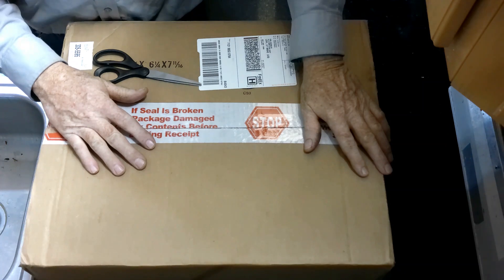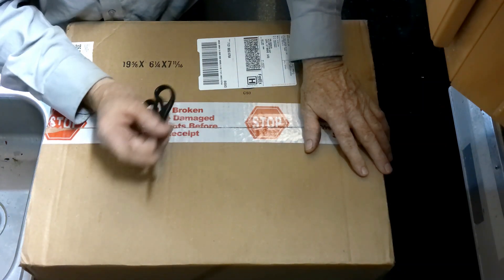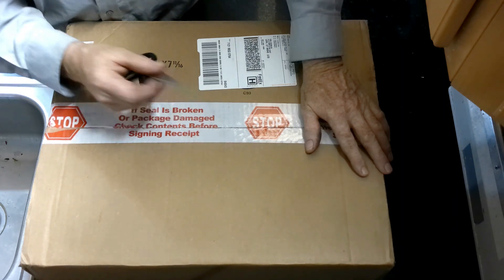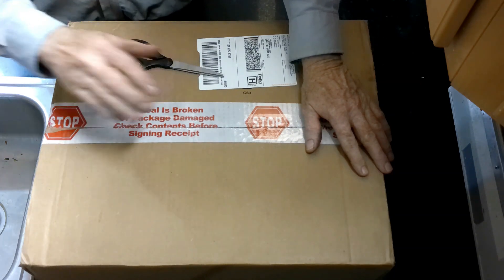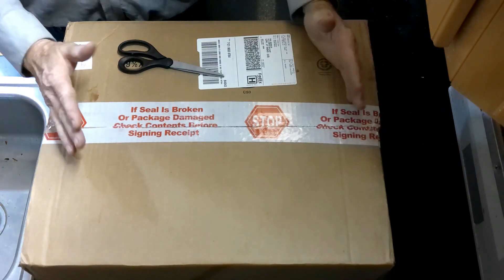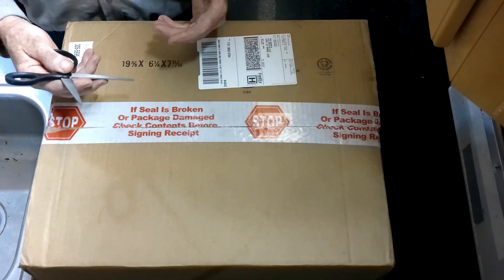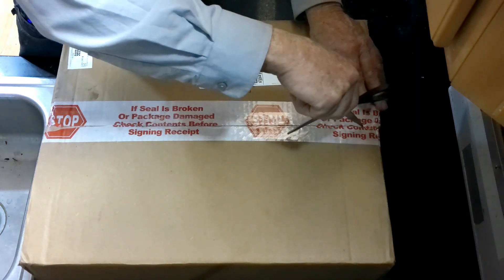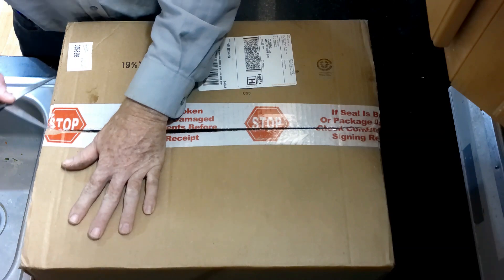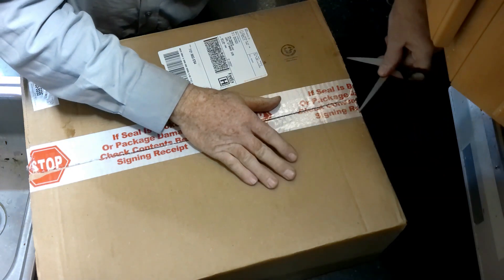Back in June of 2021, there was a recall on Philips brand Respironics CPAPs. That was two years, four months, and 14 days ago. Today by FedEx, I finally got my replacement CPAP, which I find a little bit ironic because when the recall went out, they actually told you not to use your CPAP. That means I would have gone two years, four months, and 14 days without a CPAP, and that is just nuts.